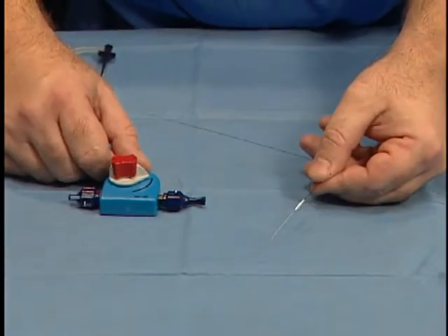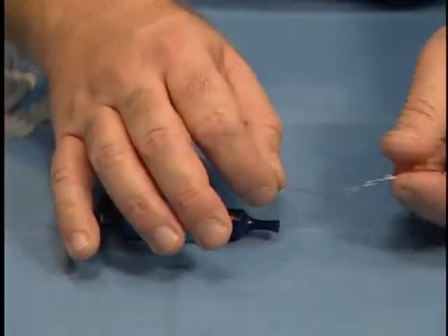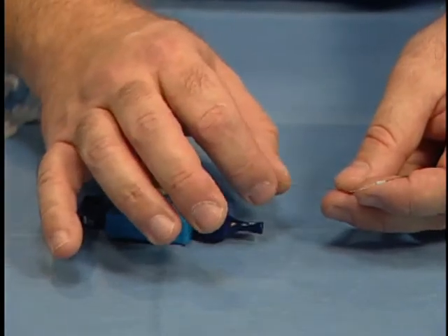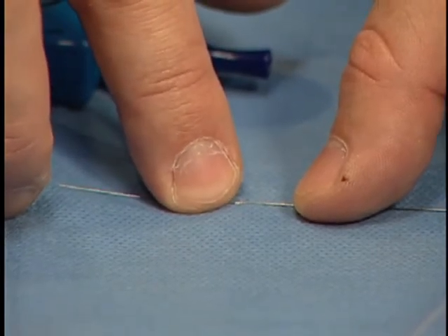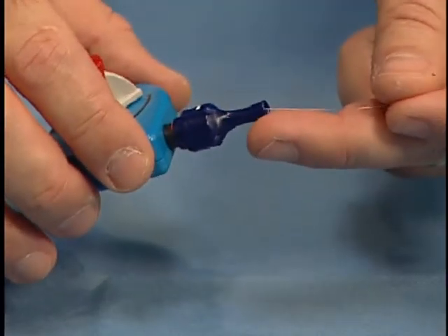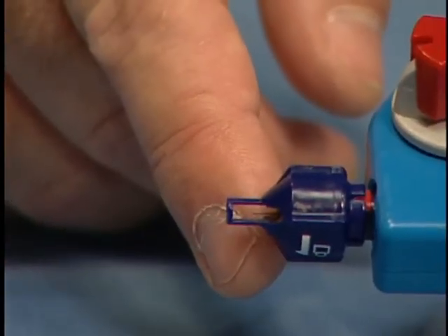This is a demonstration of the Fibernet filter device. It's a very low profile system of fibers. The wire itself is an outer sleeve, there's a hypotube, and then a center core. You can see there's a change in diameter right between my fingers where the inner core is coming out through the hypotube.